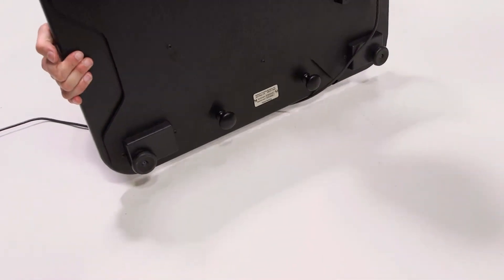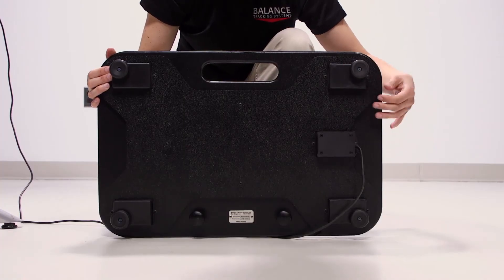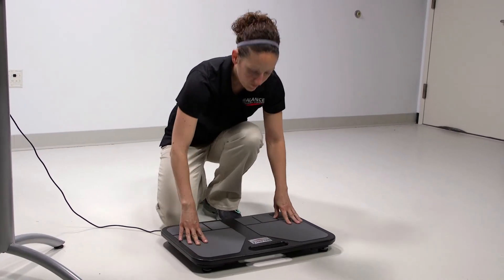Push on the top of the plate to ensure all four legs are in contact with the floor. If the plate is unsteady, adjust the height on the legs by turning them in or out. Test the plate again.